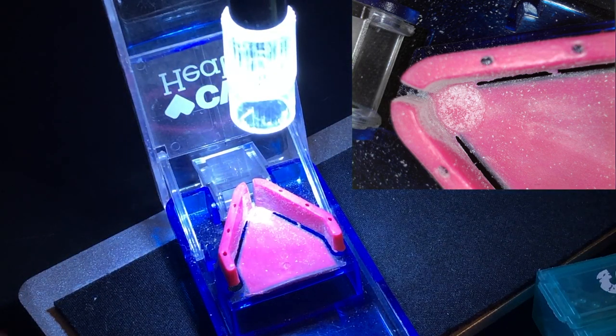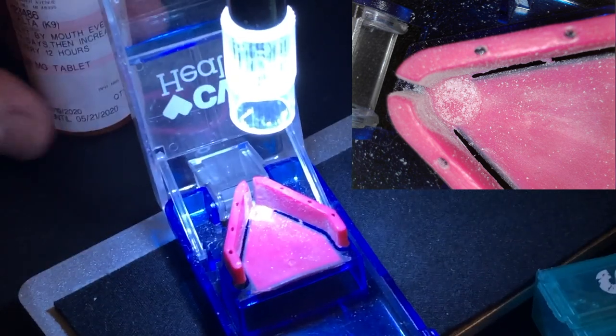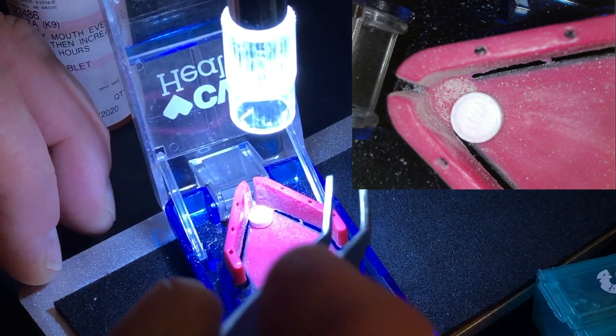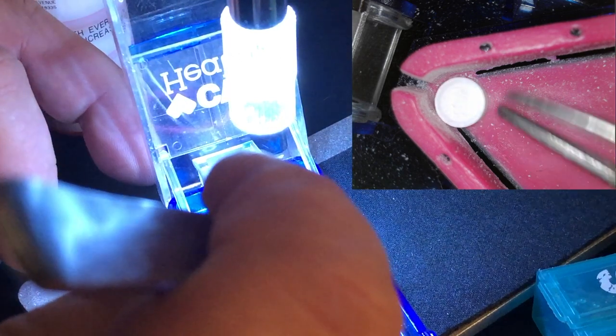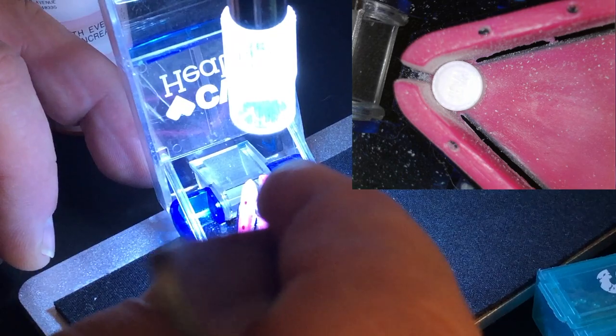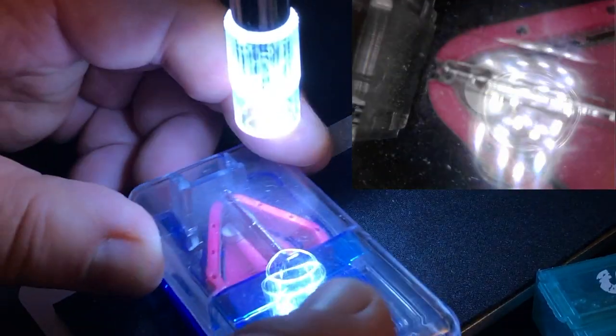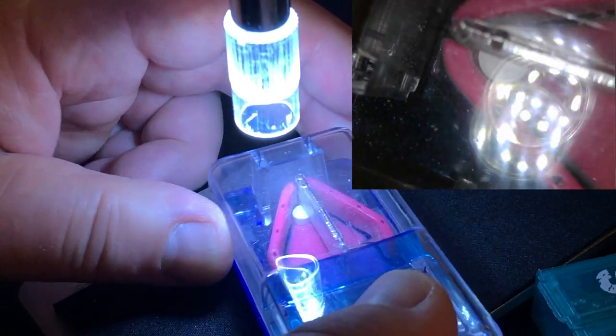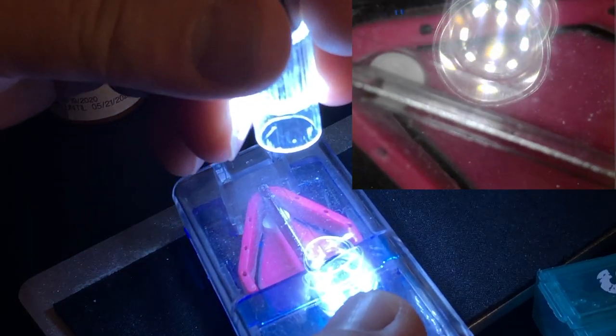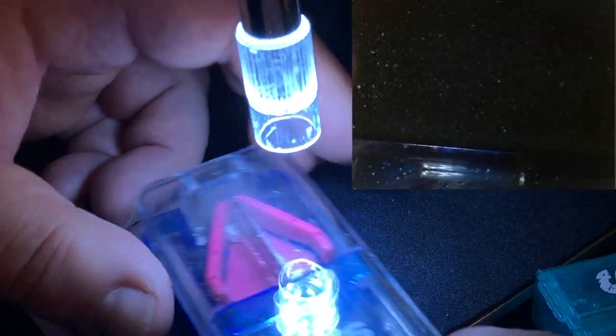Now, let's try this again with another one. Yeah, that's the only trick with this is a cut between the text and the numbers. I'm going to show this with a good pill cutter here. You see, there is the text. Now, what I also found out, if you align this now here nicely, and then I move it around to close it, then it might move again. And it doesn't align 100% with those numbers. I'm trying to film this here, but there is a little glare from those slides.